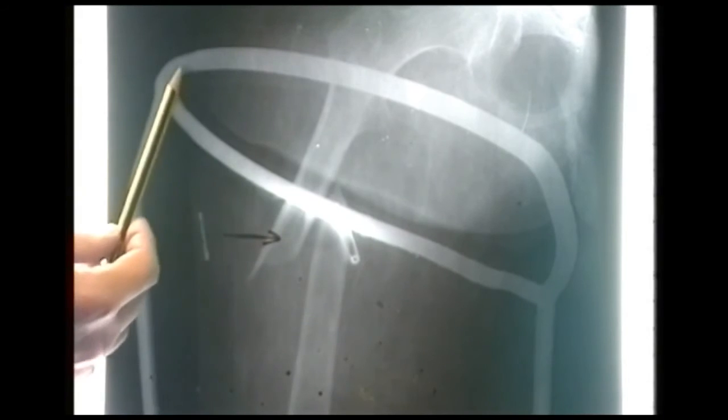This fracture of the femur has been immobilized in a Thomas splint — you can see the markings on the x-ray. It should always be applied in the accident and emergency department. If you have reasonable grounds to suspect a fractured femur, there's nothing lost if you made an error in diagnosis, and a lot gained if you're correct. It's very good for pain control and may reduce haemorrhage by preventing the fracture from moving. These fractures can then be treated with traction or with operative intervention and fixation.